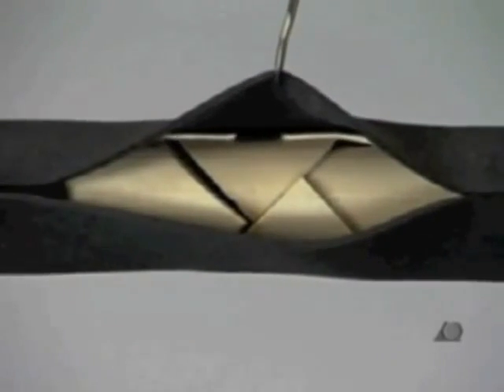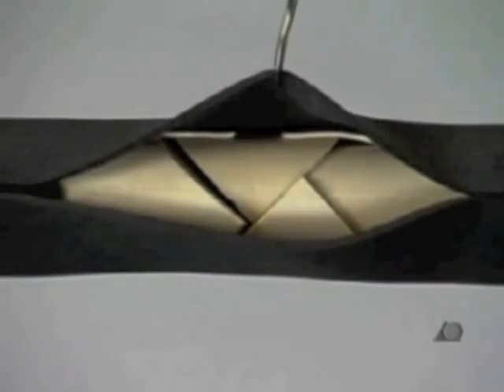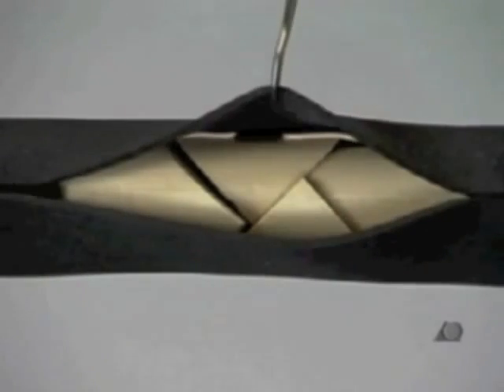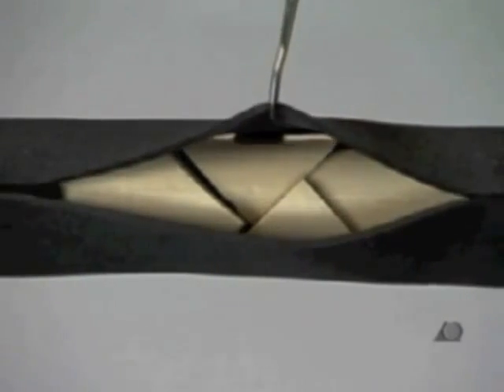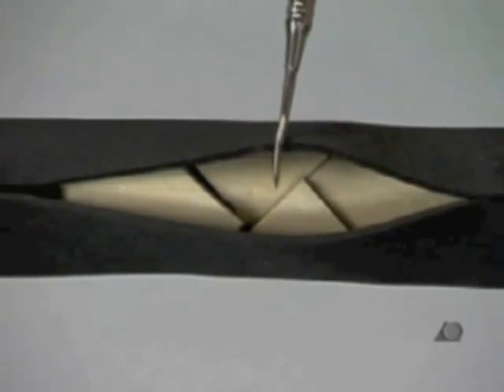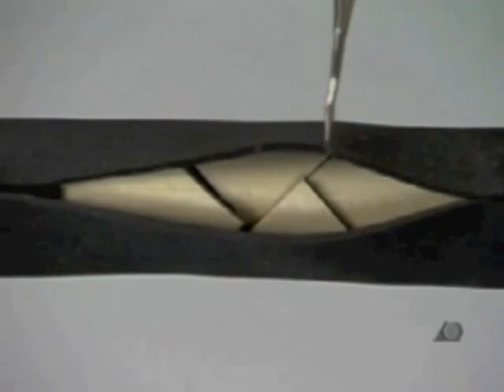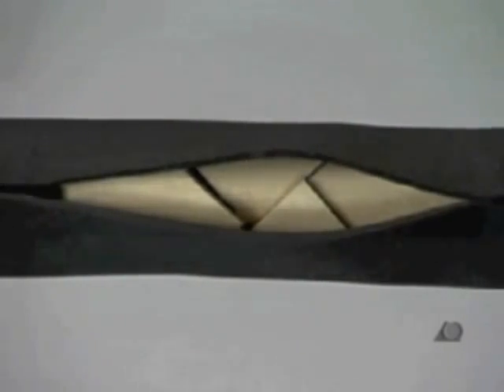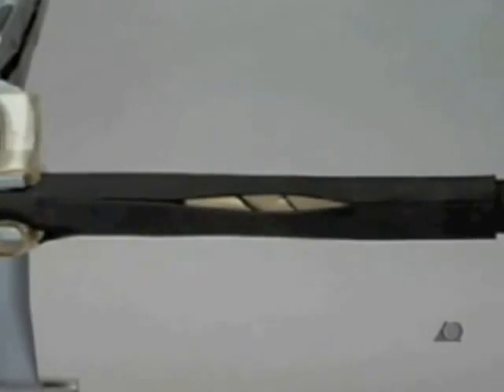or the use of a distractor, a temporary external fixator, or a traction table. In clinical practice the objective is to minimize the additional trauma to the fracture zone by using no direct manipulation of the fragments.